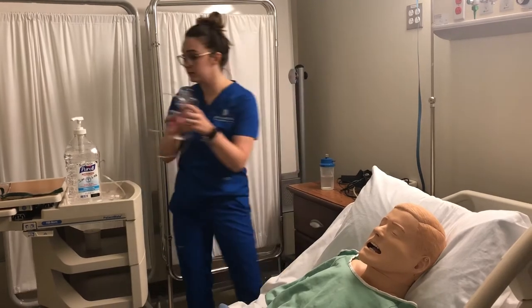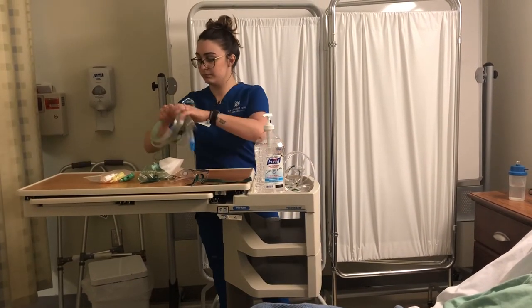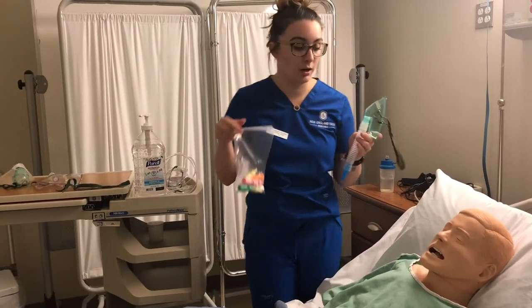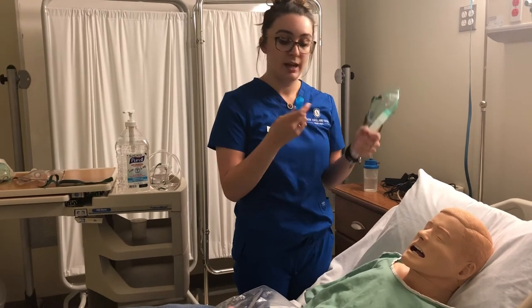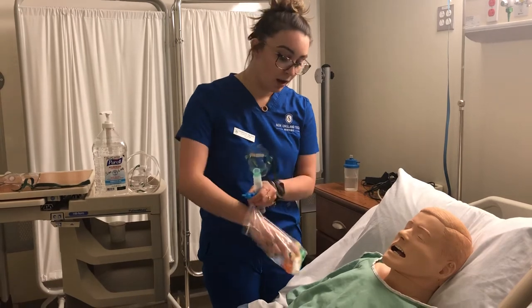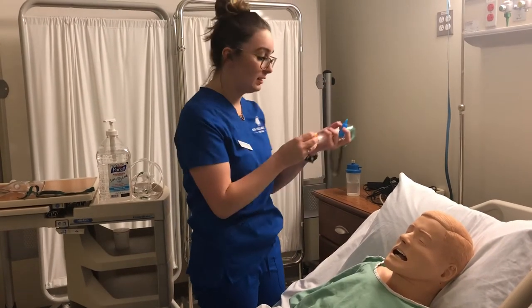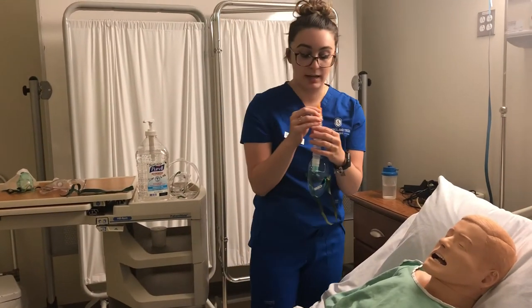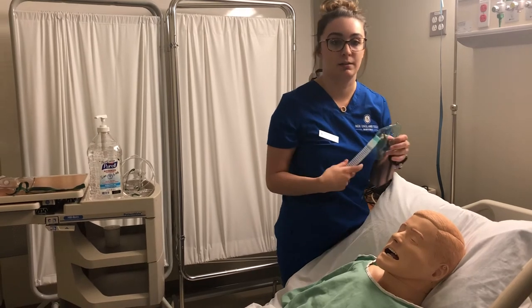Next, I'm going to show a venti mask. Venti masks look different depending on the hospital or nursing home you're working at. Always look at the doctor's orders because each connector has a different liter flow and oxygen percentage. Never go by the color — the colors are always different. For example, this connector says 50% oxygen at 10 liters, meaning you give the patient 50% oxygen using 10 liters. This is a very precise, controlled way to administer oxygen.